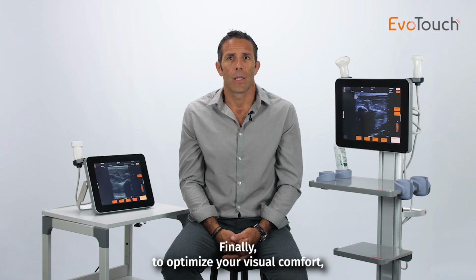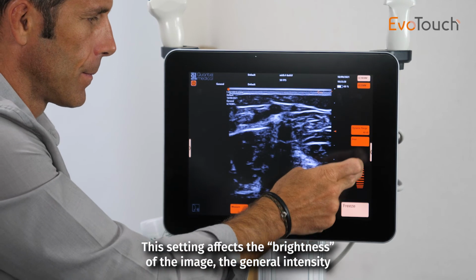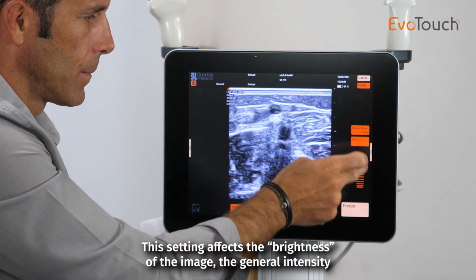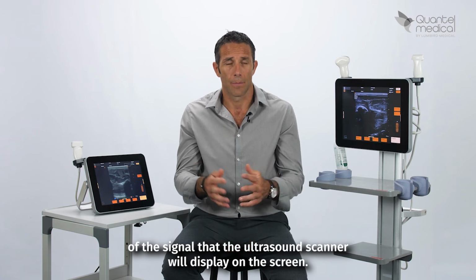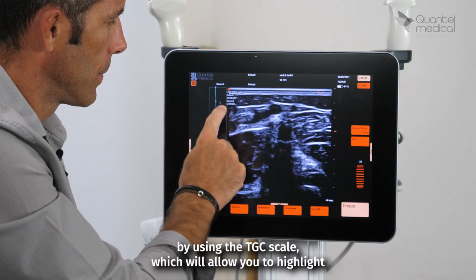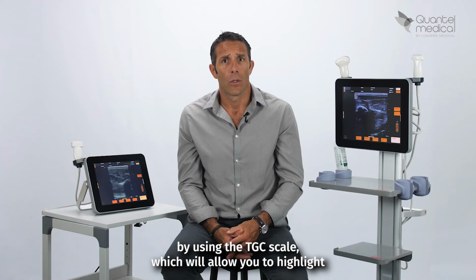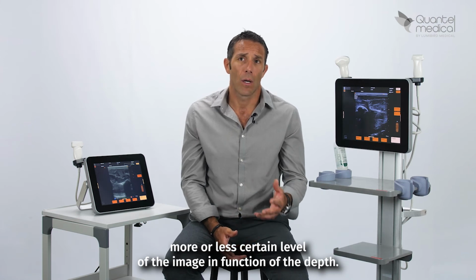Finally, to optimize your visual comfort, you will have to adjust the gain. This setting affects the brightness of the image, the general intensity of the signal that the ultrasound scanner will display on the screen. You also have the possibility to adjust the gain by depth level by using the TGC scale, which will allow you to highlight more or less certain levels of the image in function of the depth.